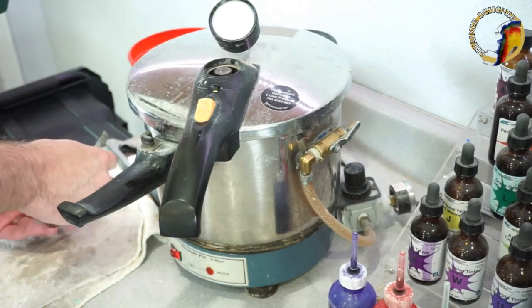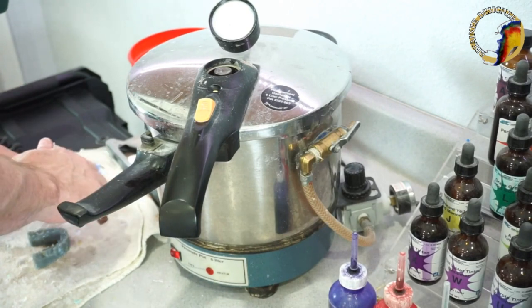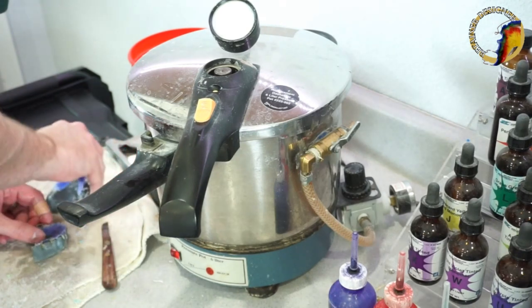Remember the side where I said don't add acrylic after you've made your cuts — yeah, I thought it was stuck. It happens every once in a while. All right, I've got these — I'm going to the steamer.